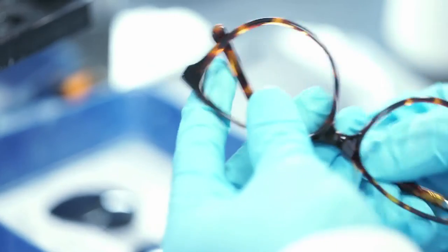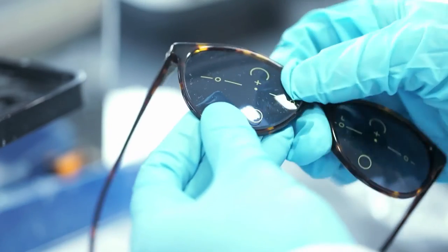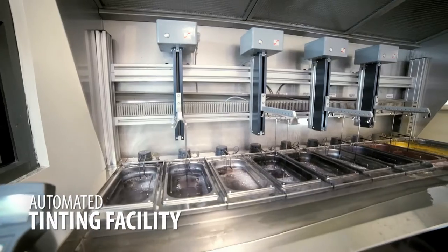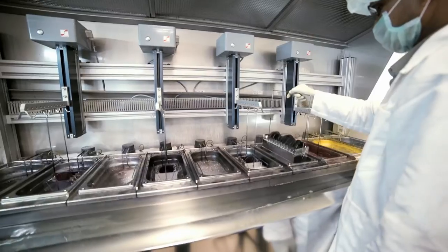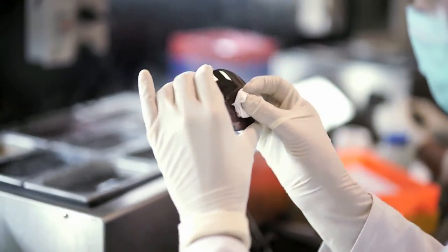It has the facility for specialized edging for high base curve wrapped frames and plug-in or plug-out frames. Tinting for various lens materials like high index, polycarbonate lenses, and Trivex is possible with exceptional accuracy and perfection.